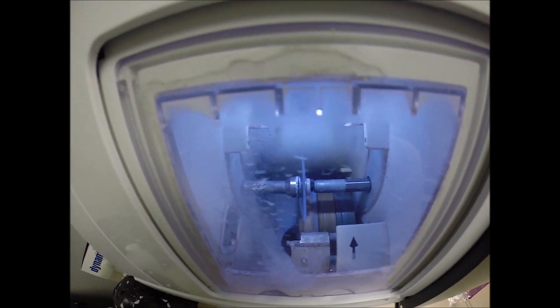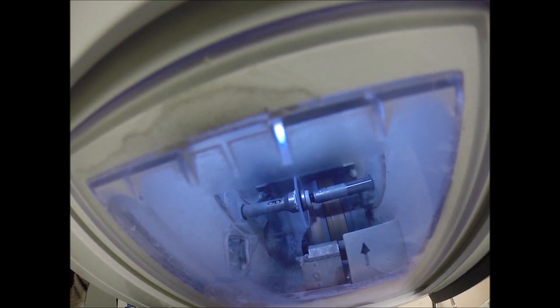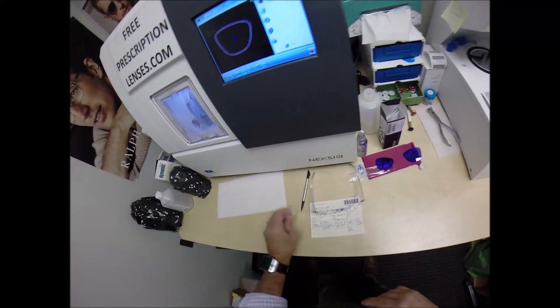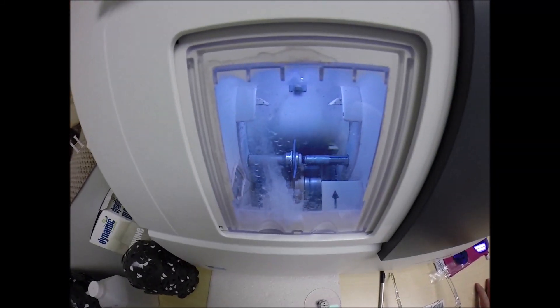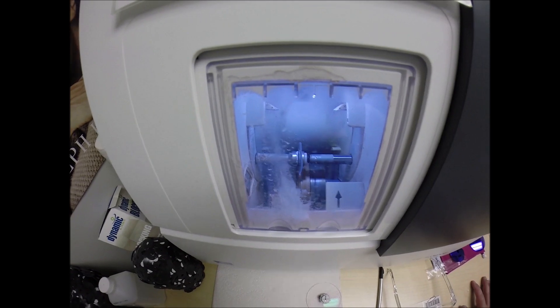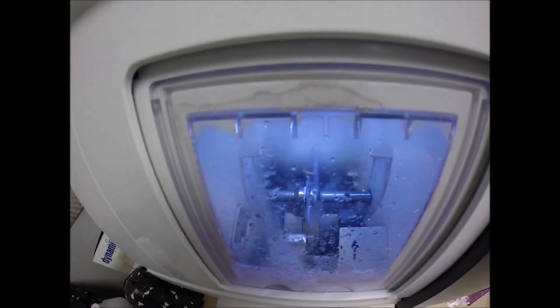Polycarbonate lenses cut dry; plastic, high-index plastic, and Trivex cut wet, meaning that water sprays onto the lens for the duration of the cutting cycle. Water will spray onto your lens, Christian, but only for the last 20 seconds to wash away any optical debris. Your lenses are made out of polycarbonate, which are 40% thinner and lighter than regular plastic — they're virtually unbreakable. They are high-impact ballistics-grade lenses, the same lens material that our soldiers wear overseas in combat zones to protect their eyes from shrapnel and flying debris. They also have 100% UVA and UVB protection built into the lens. Your eyes are eight times more sensitive than your skin, so you have permanent sunscreen for your eyes, unlike lotions, creams, and sprays that need to be reapplied every couple of hours.